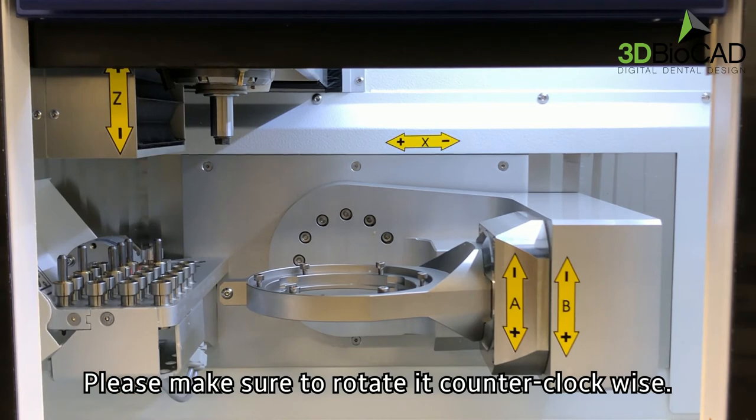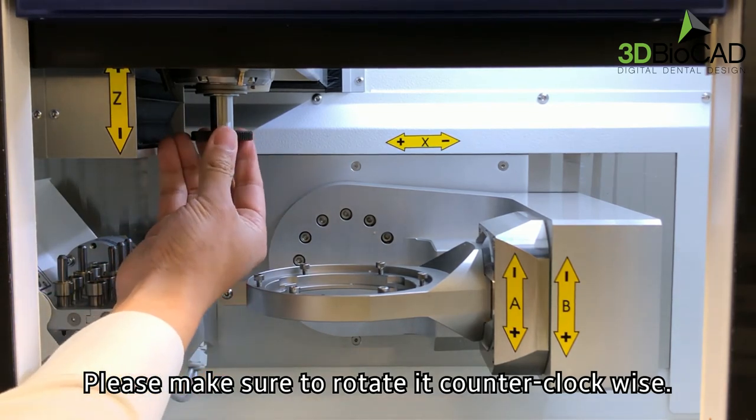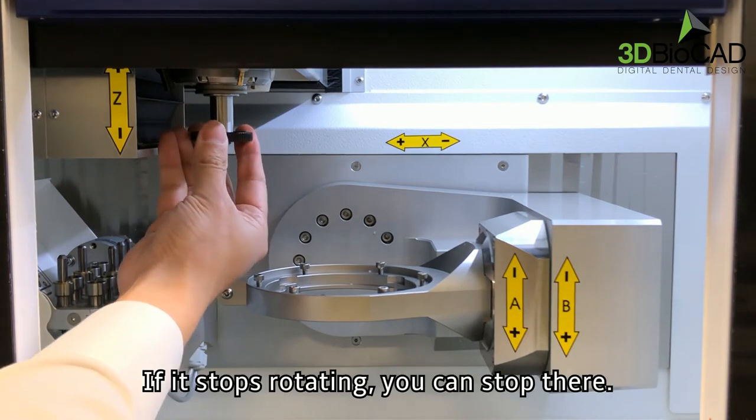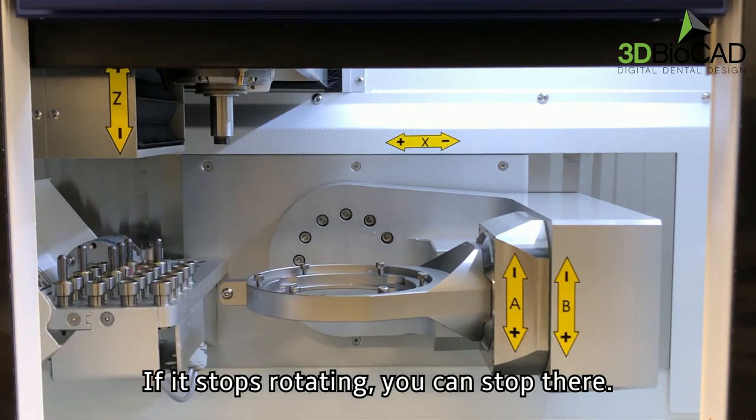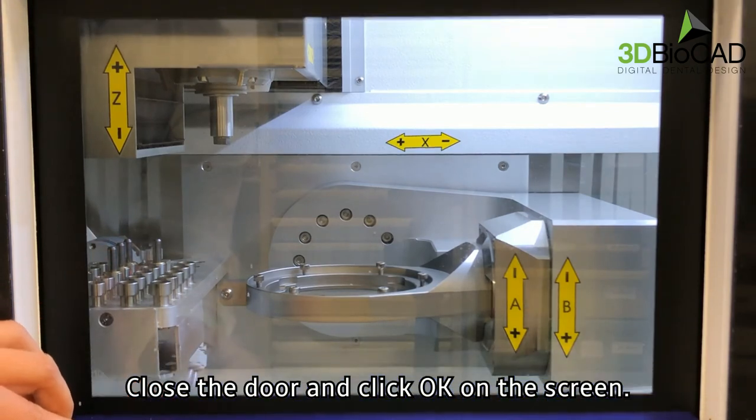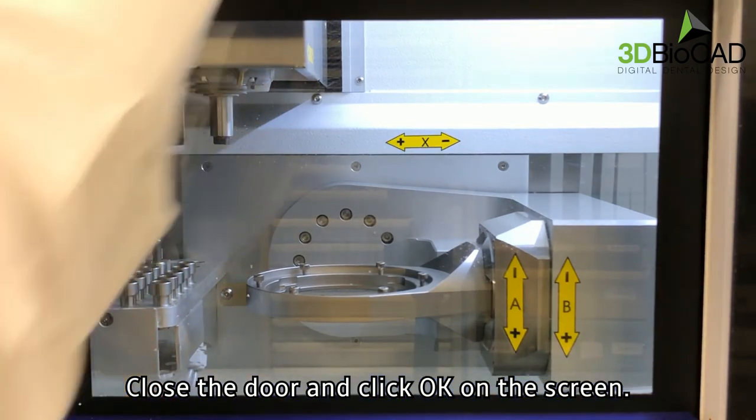Prepare the spindle and fit it inside the machine. Please make sure to rotate it counter-clockwise. If it stops rotating, you can stop there.